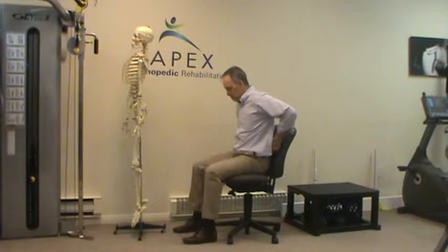In a perfect world, we'd have some armrests here. I just want you to see the orientation of the roll — you want to scoot back. Most people scoot forward and lose that curve. So you want to get back as far as you can. This seat is probably about the right height — ideally a little bit lower, so your feet are in continuous contact with the floor. Using that roll, you can see as you get that little curve, your head is a little better positioned and you tend not to be as far forward.